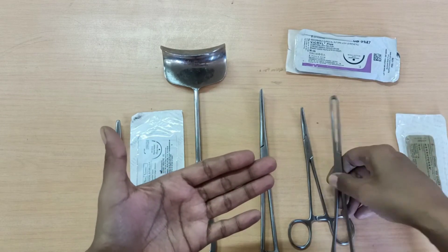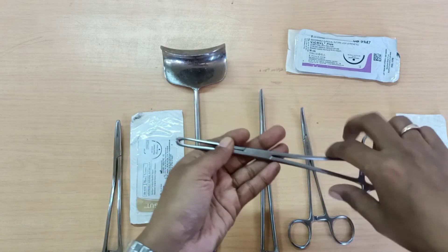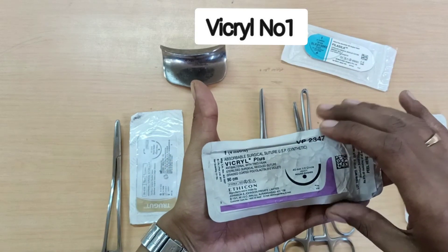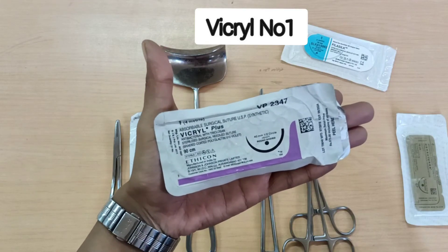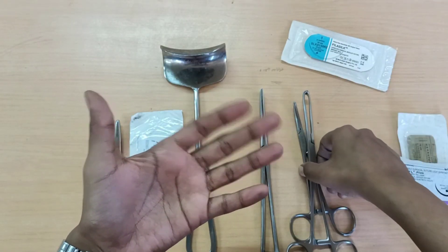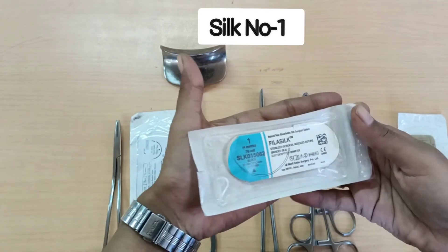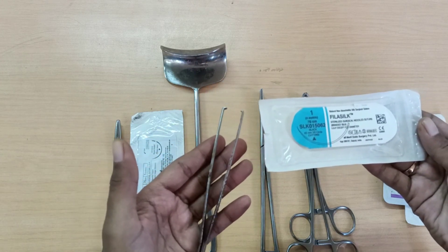After closing the peritoneum, hold the edges of the rectus sheath with Alice tissue holding forceps — four of these, for the two angles and the upper and lower edges. The suture used is Vicryl number 1, sutured in a continuous fashion from one end to the other. Next is skin: for skin you require silk number 1 on a cutting needle, sutured in interrupted vertical mattress sutures, and you will require tooth forceps for it.